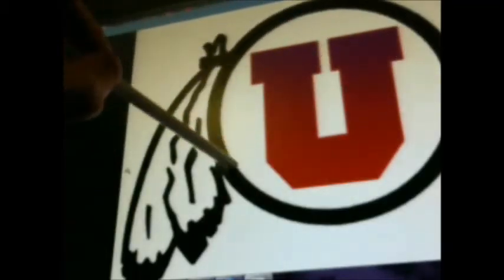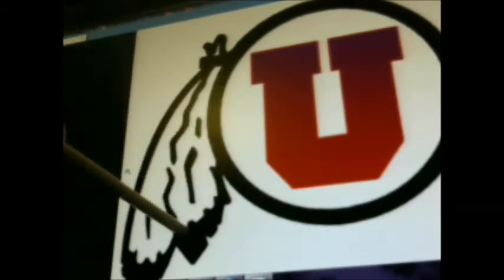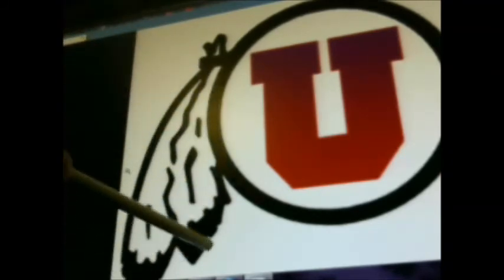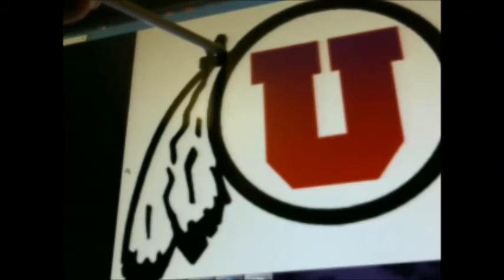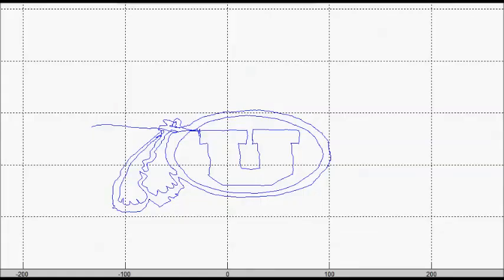But the ideal approach is to track the surgical tool using only the Leap and the tool without the aid of spheres or a checkerboard. This latter approach is currently in the development process. The Leap Controller is able to track objects such as an unsharpened pencil with extreme precision, and the hope is that this idea can be built upon and used with the aspirator.